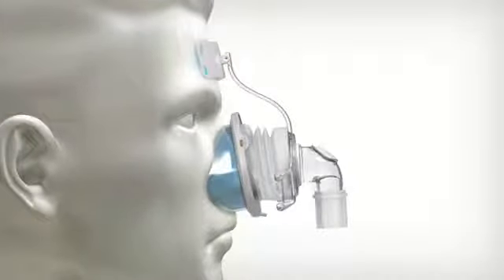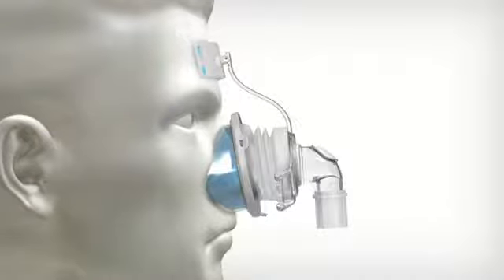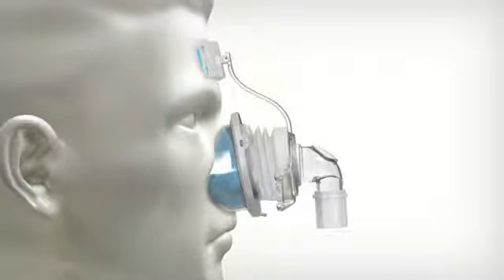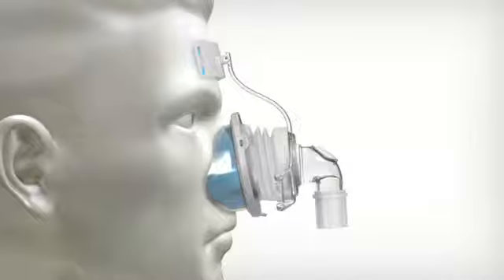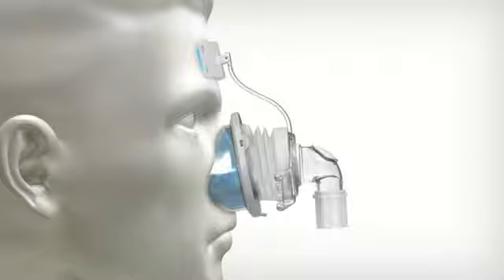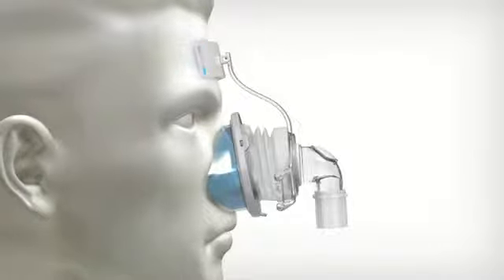Next, our intuitive self-adjusting forehead pad, designed expressly for True Blue, is enhanced for comfort with a remarkably soft premium blue gel. It pivots on the forehead for a good fit and delivers comfort as the Freeform Spring adjusts.